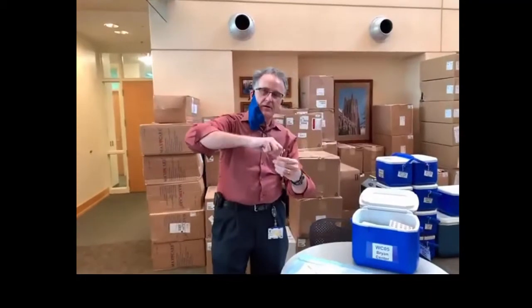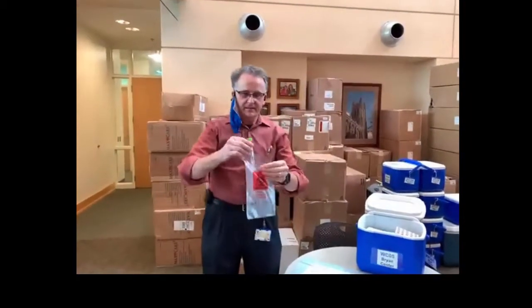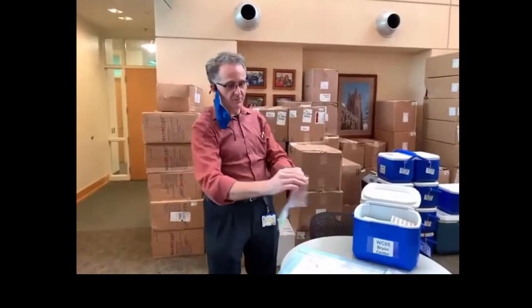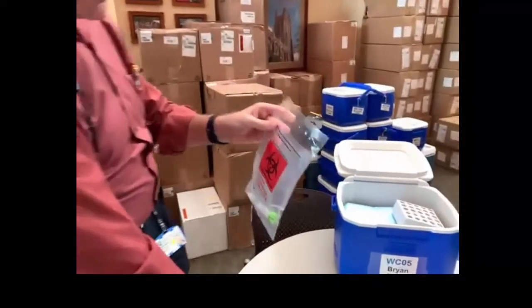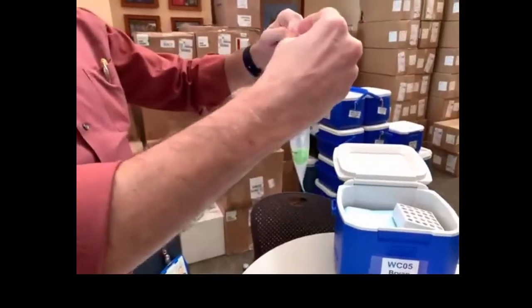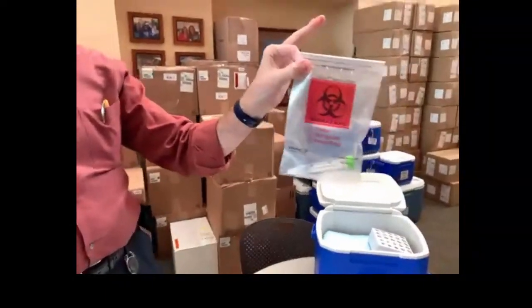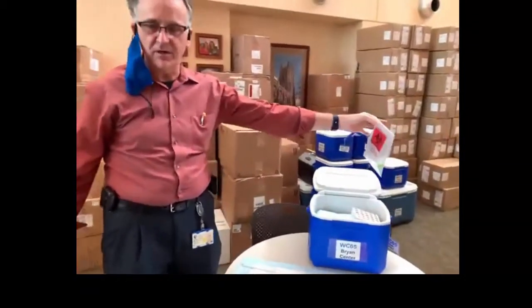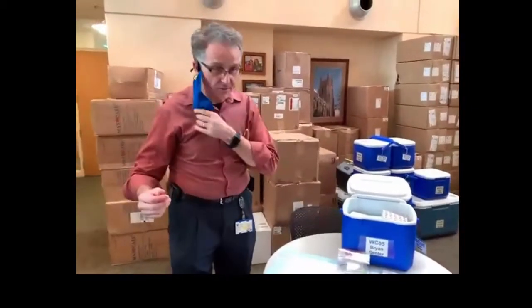This plastic piece they throw in the trash. They put the caps back on the vial, then put it inside the bag and seal it up. The sealing process: they peel this plastic off, fold this over — just like sealing an envelope. That's it, that is literally it. And then that gets dropped back into whatever container we're going to use to collect the specimen. That is the entire procedure.